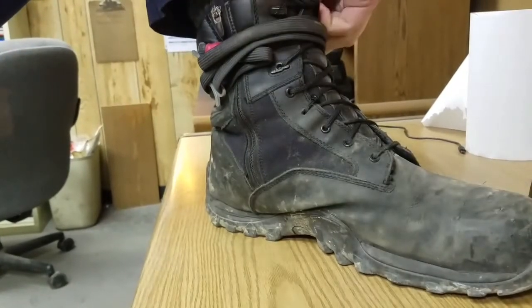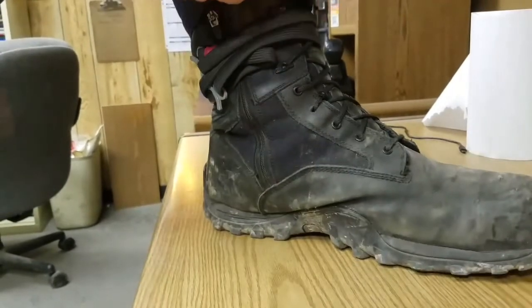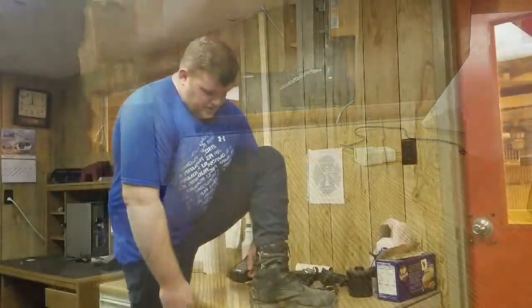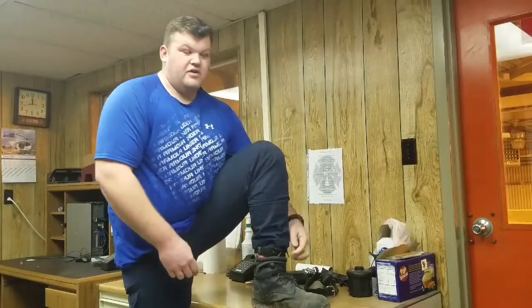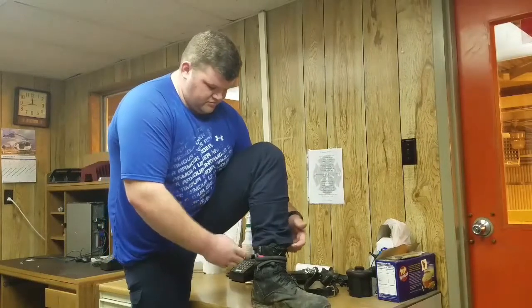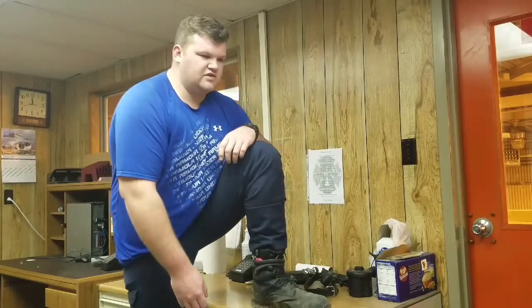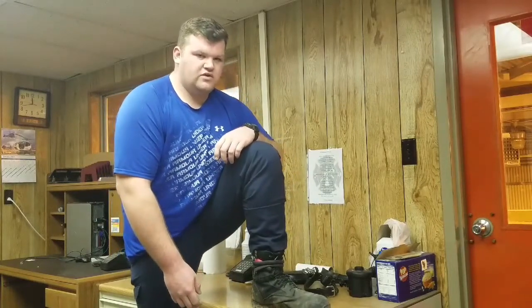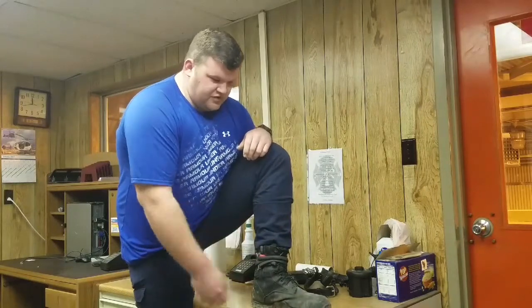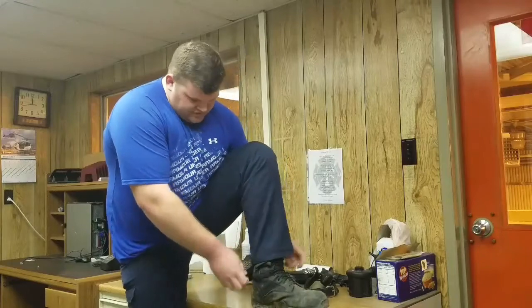That's how long it takes in the morning to put this on. I've carried this for about a month — tight, loose, lower, higher, buckle in different places — and haven't had any issues. I used it during force-on-force a week or two ago, deployed it a few times there, and I've deployed it a few times just in training and testing.